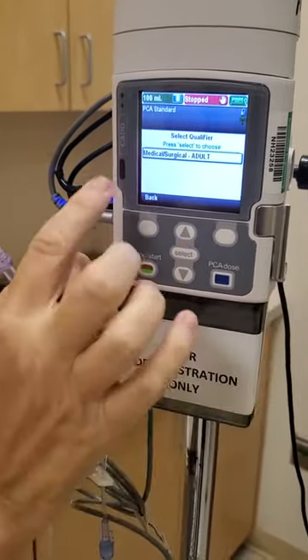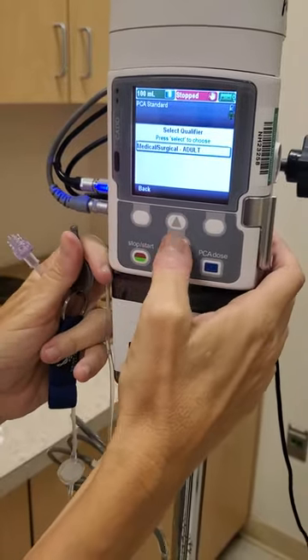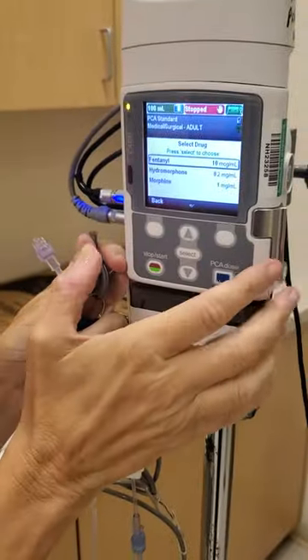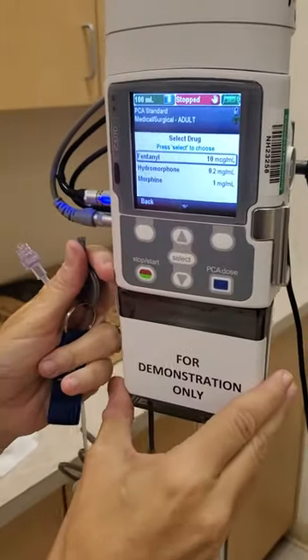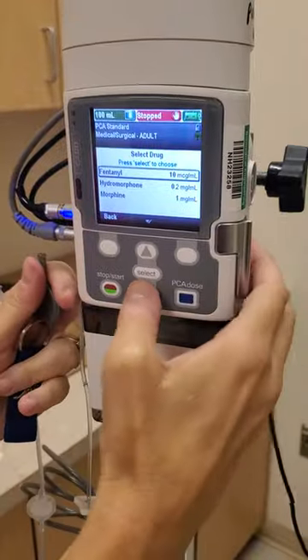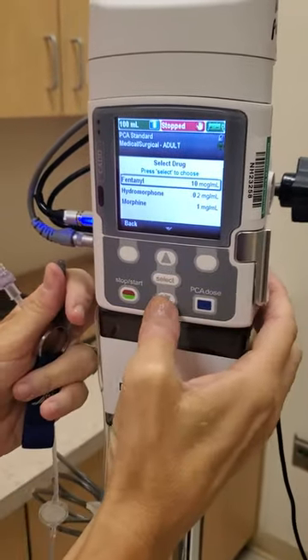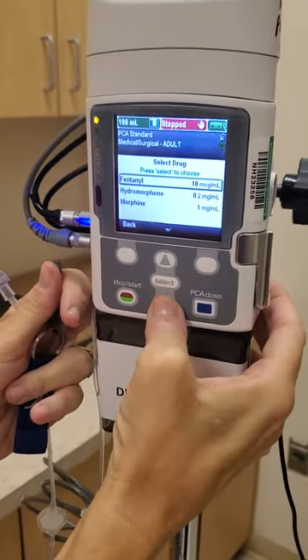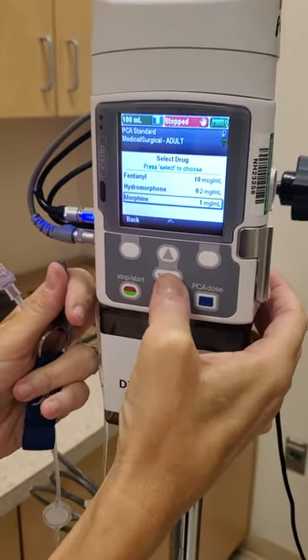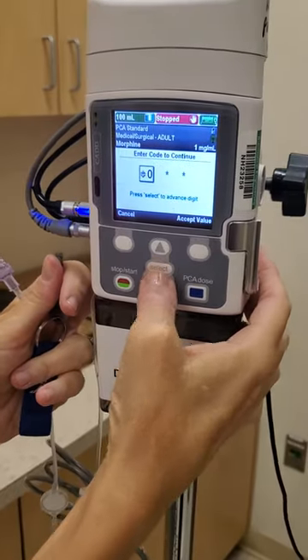Now it says my qualifier is a medical surgical adult patient, so I'm going to select. The next screen asks you to select your drug. There are three drugs listed here, each with their standard concentration. For demonstration purposes, I'm going to select morphine — of course, this drug would be in your order.